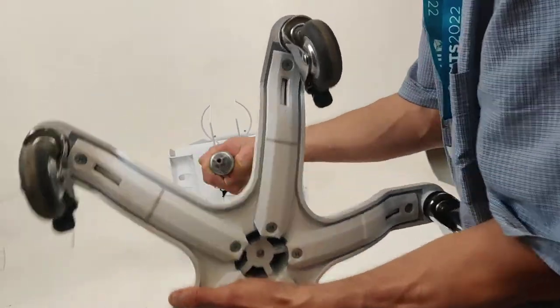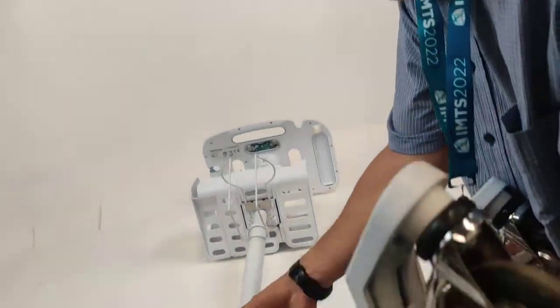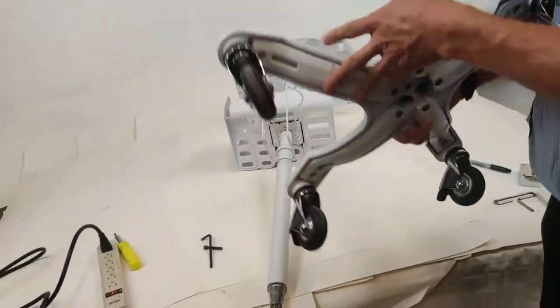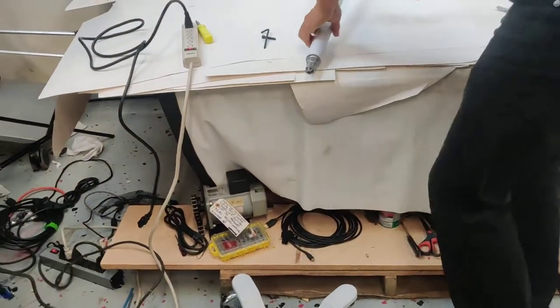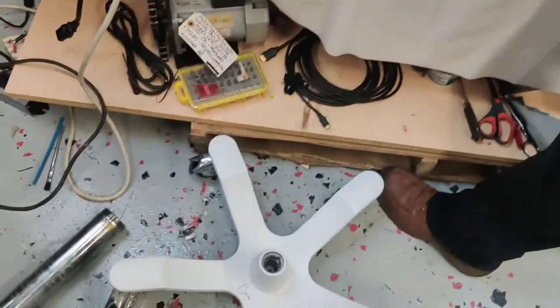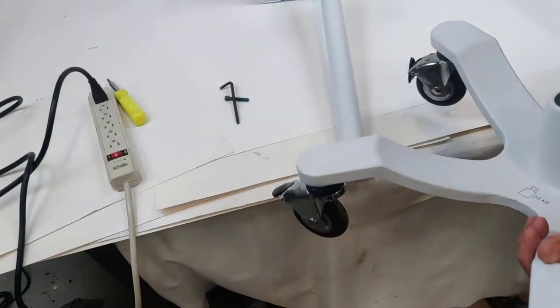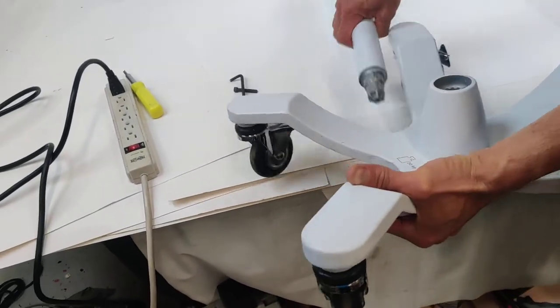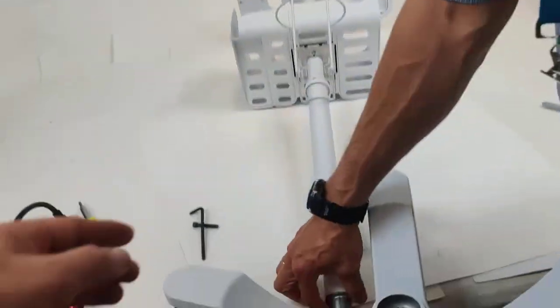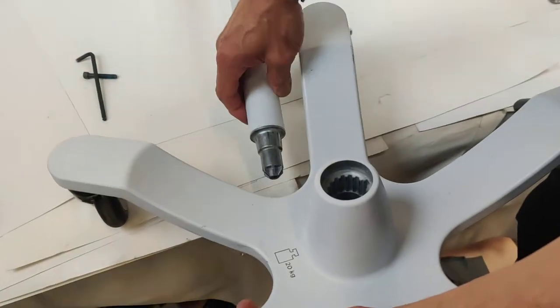But sometimes to detach this from this you need a mallet, like a rubber mallet. Sometimes it's very tight here.